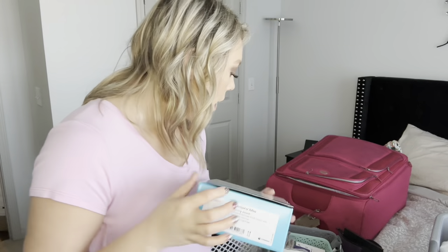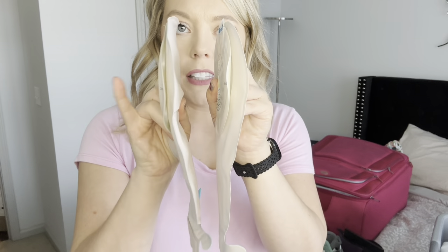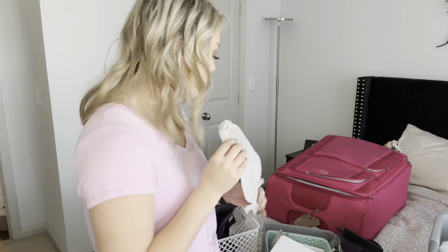Another bag I've liked is the 10471. The only difference between these two is that the one I'm currently using has a little more convexity — you can see side by side how this one sticks out more, or when it's on your stomach it snugs in more. I found that snugging up to my stoma helps me not leak, and it also protects any irritated skin around the stoma. I contacted Coloplast to try samples and it worked for me — they're amazing and will send tons of samples.